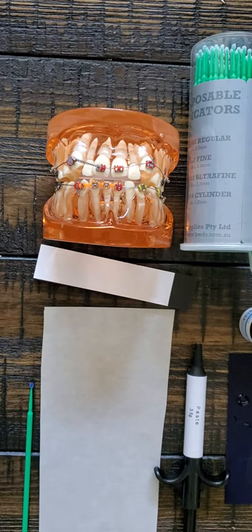You don't want to put posterior bite bumps on all your patients, because if you leave them on too long, the teeth that you put them on can actually intrude over time. So we only want them on as short as possible and we want to make sure we take them off. The reason I don't like them when they're done clear or white or tooth-colored is that you forget they're on. They kind of quasi start to wear down, they look just like a lumpy filling, and you forget. Then later at the end of treatment the patient asks if you're going to take it off — and now those teeth are intruded and you're spending another four months in braces trying to upright them. That's why I like to color them.